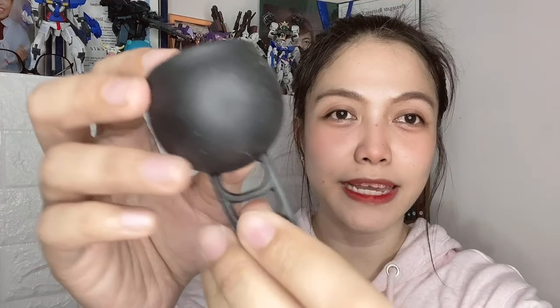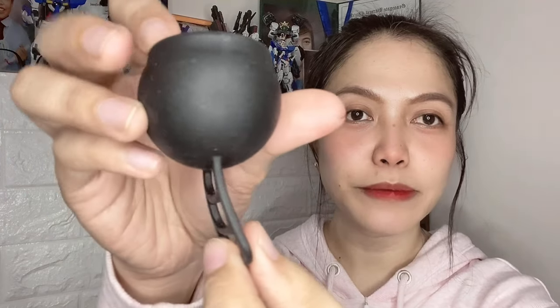One thing I forgot to mention is that the stem of the cup can be trimmed. If you feel it's poking out or coming out, you can cut it. However, it's not advisable to cut it all the way down or remove the stem totally, because it would be difficult to remove the cup — it's slippery, there are no grip rings, and since the shape is rounded, it might even rotate inside. If you don't want to cut the stem, you can just tuck it inside instead, to avoid irritation while preserving the ladder stem.